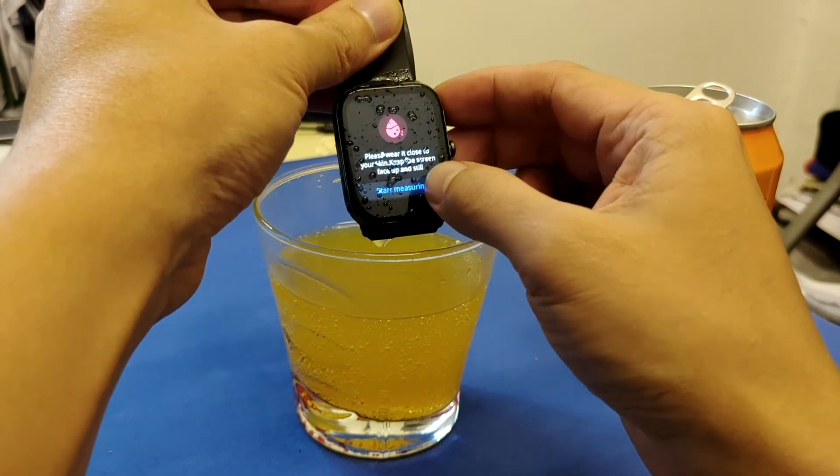It seems it's not going to work. Why? Because most liquids have lesser absorption of the red light — the light simply passes through. Even when you try to beam red light into a glass of water, you can still see the red light passing through the liquid.